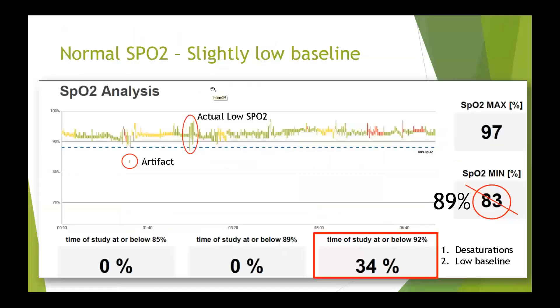We're going to zoom in on a normal SpO2 graph to introduce artifact recognition. We're doing long studies, and it's not unusual to pick up artifact on any study that lasts five, six, or seven hours. In this case the lowest value picked up by the software is 83%, which is very low. However, looking at the graph, that value was actually an artifact. The first clue is that the value is well below anything in the neighborhood, and oxygen desaturations generally come in clusters — it's rare to see normal, normal, normal, then a severe dip, then normal again.